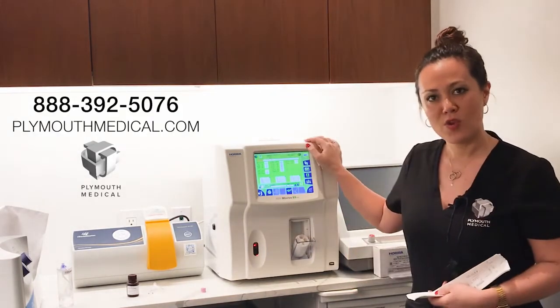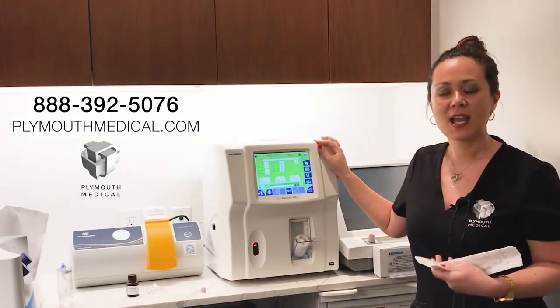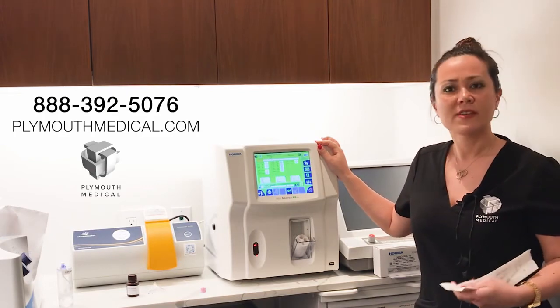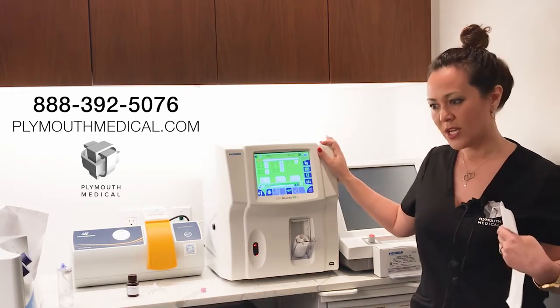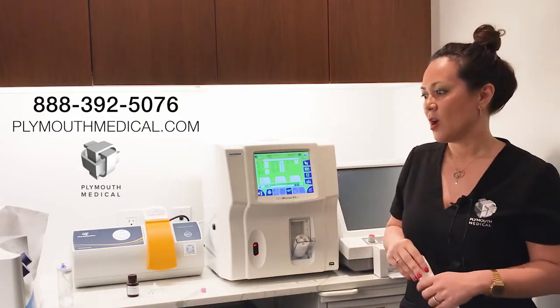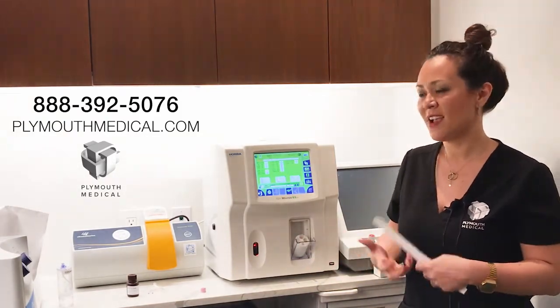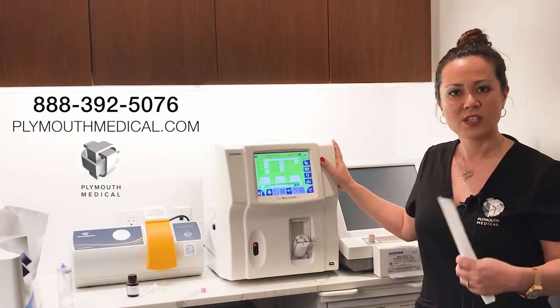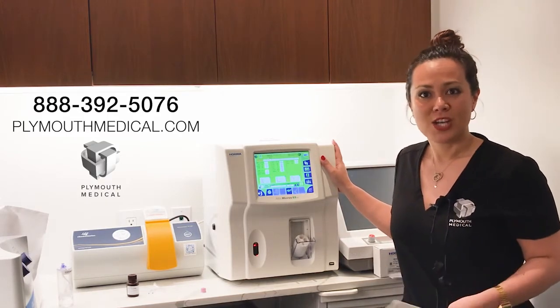So that's a quick overview of what the hematology analyzer can do for you in helping the quality control of your baseline and PRP at the point of care in very little time. With all of the regulatory concerns surrounding perinatal products and their use in orthobiologics, we've wanted to take part in moving the science forward. These types of devices will not only quality control and establish a dose of what you're actually treating and tie those injectates to patient outcomes, but will also help better understand what cells are at play and what you're actually injecting in your patients.